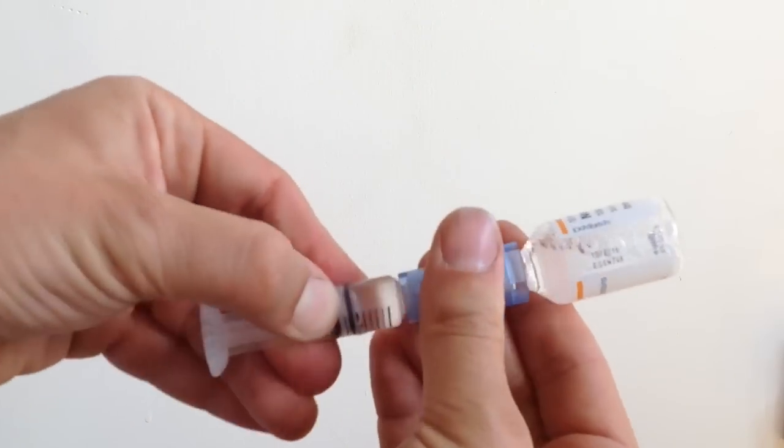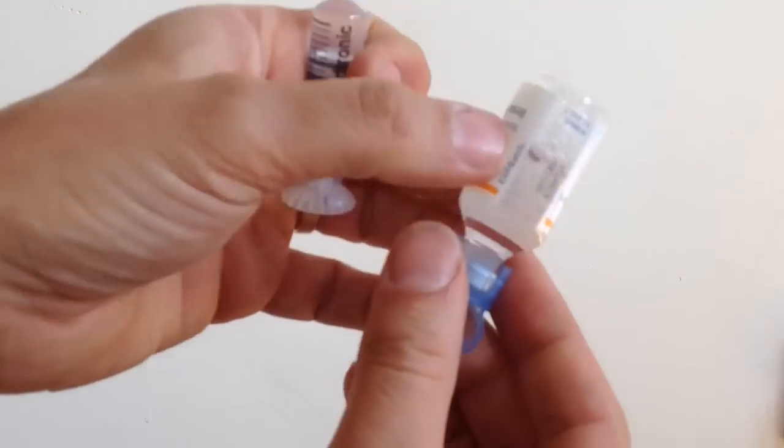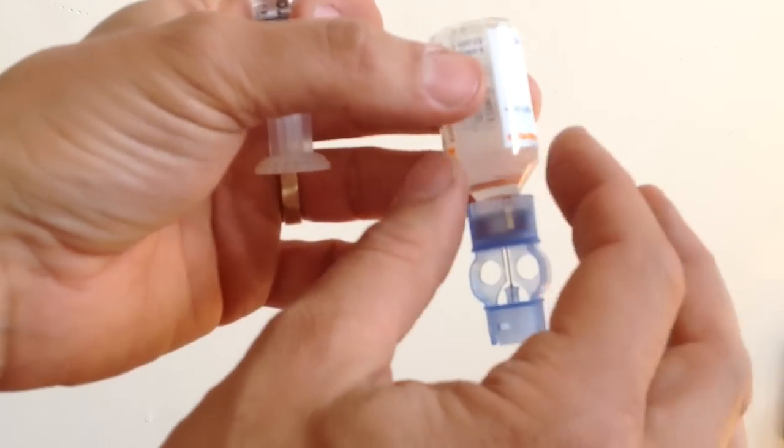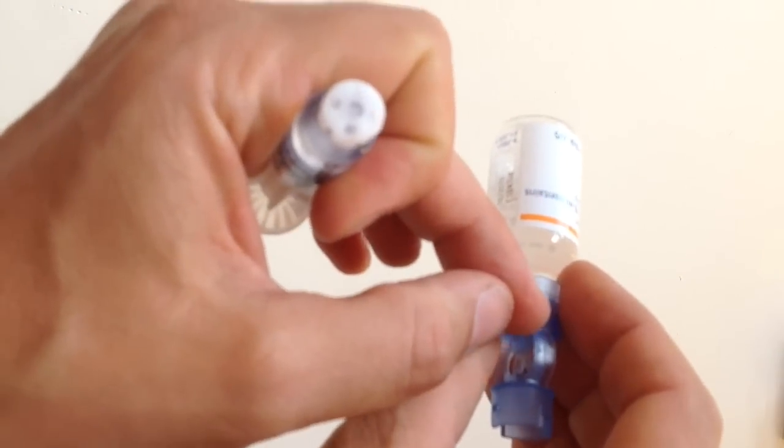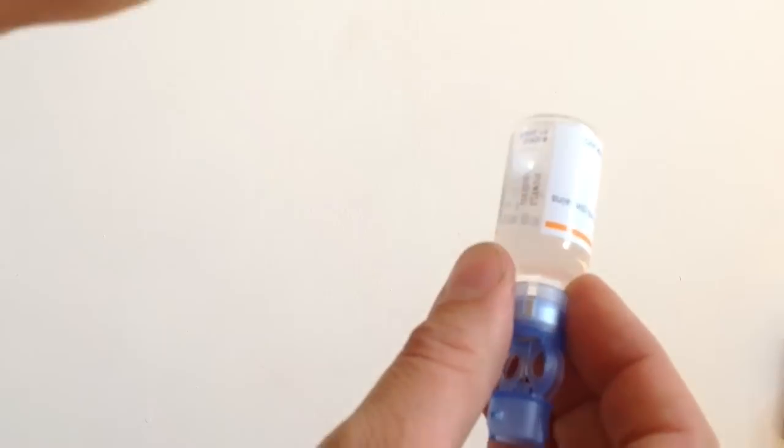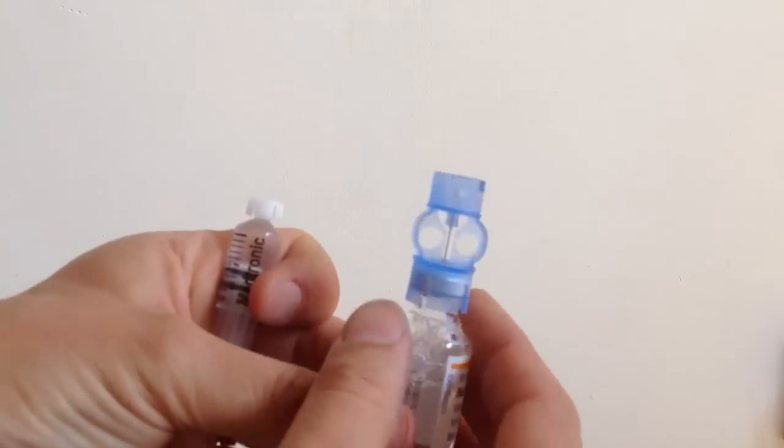And then, I'll disconnect. And you may have just heard a little slurp as the air, there was a slight vacuum, and the air just got slurped back into the insulin. So that, now I can disconnect, and put that back in its case.